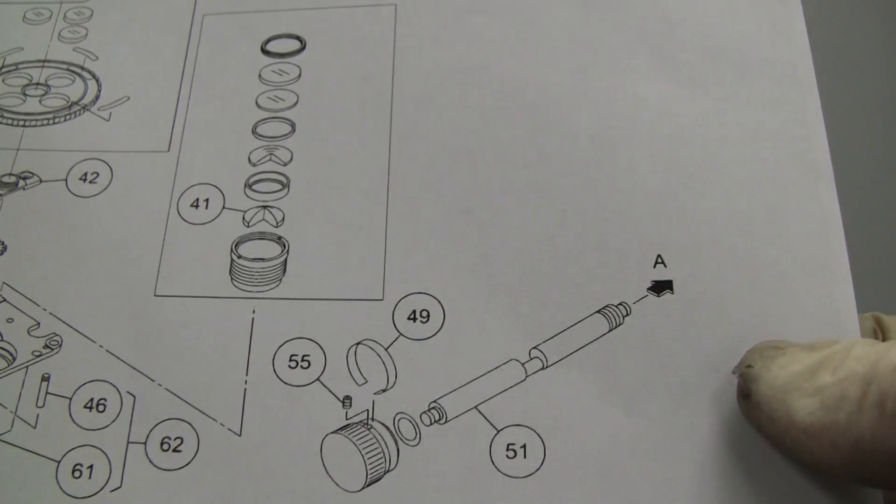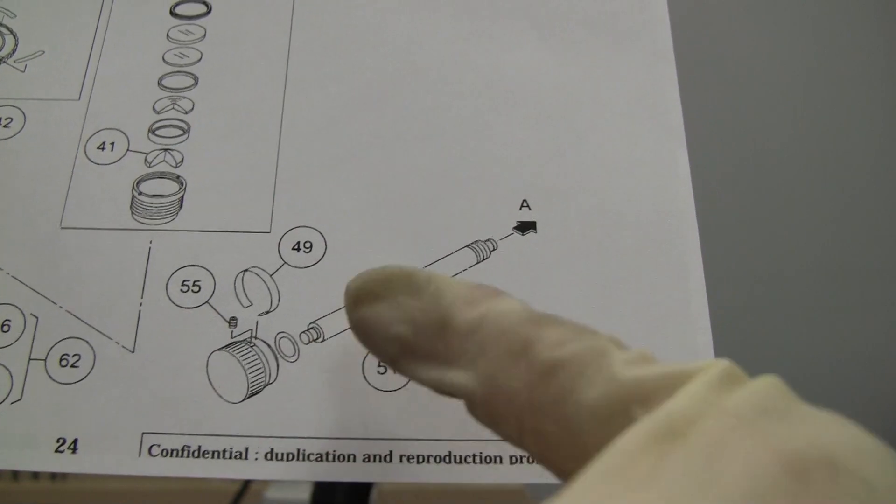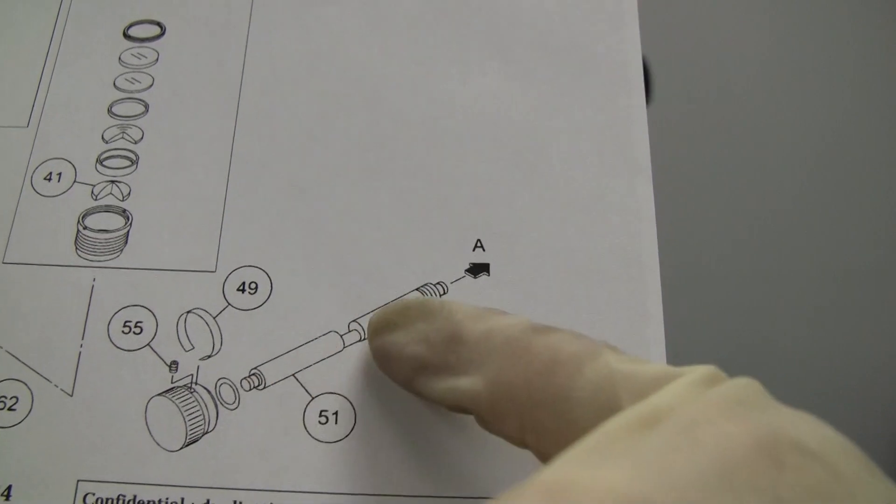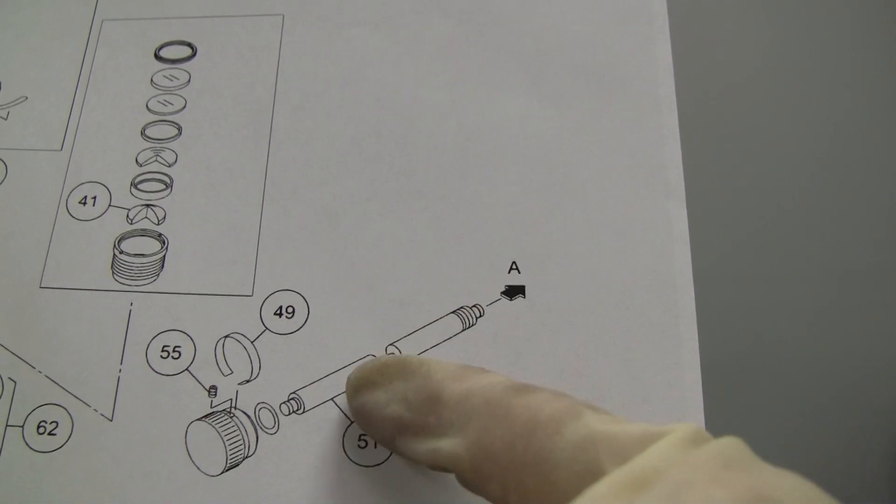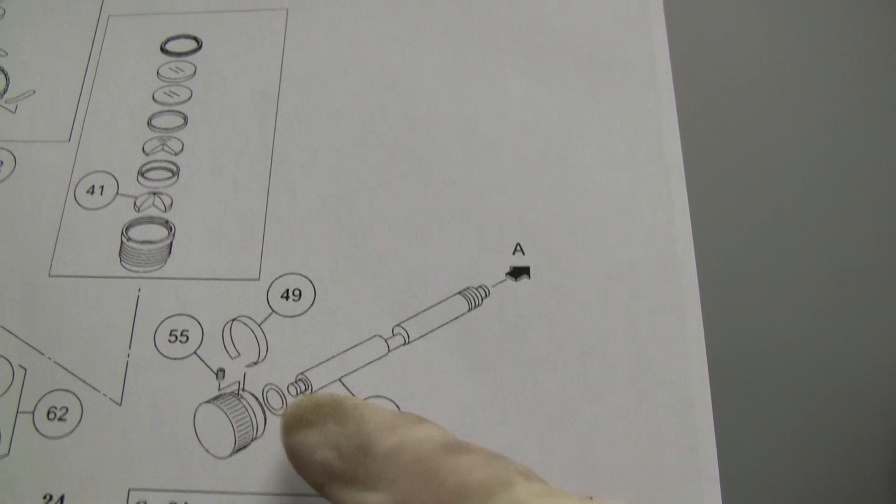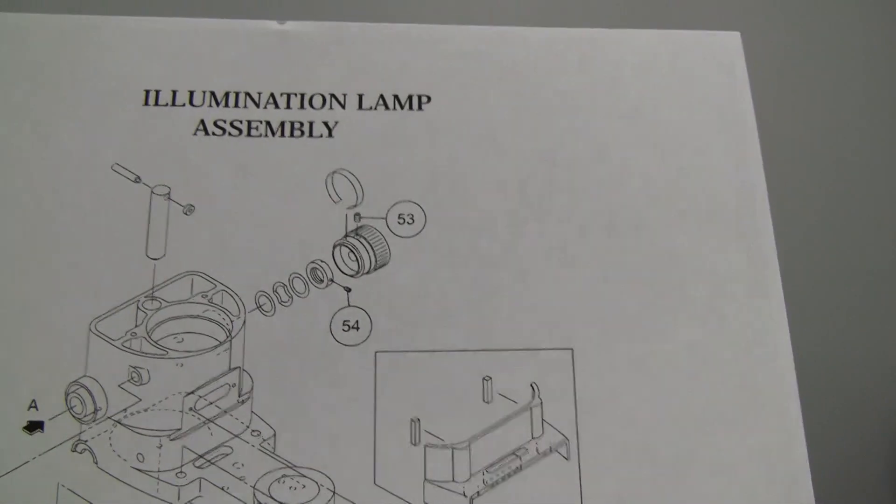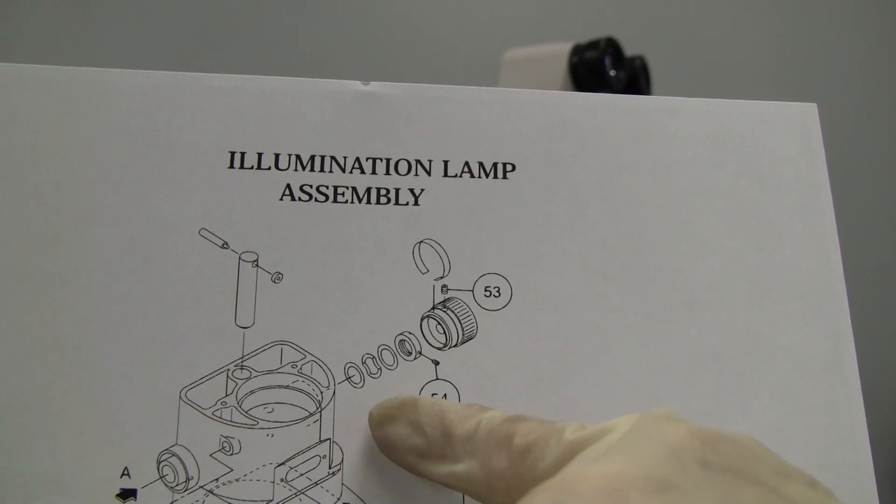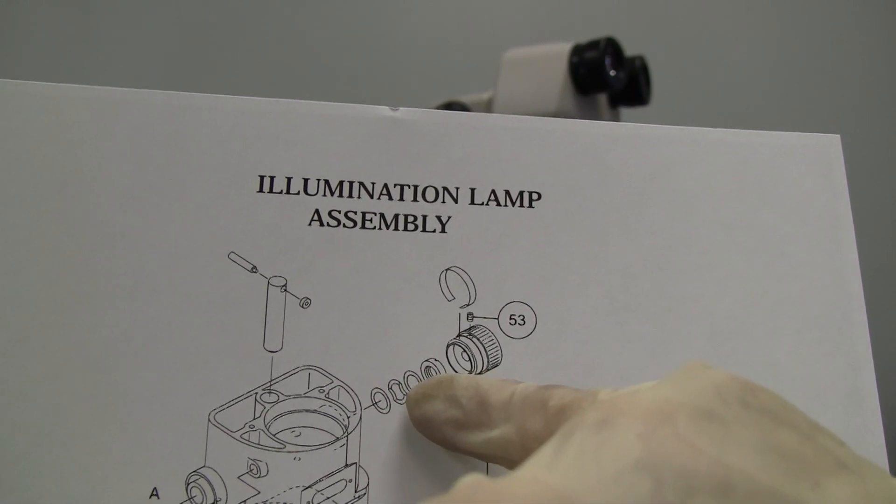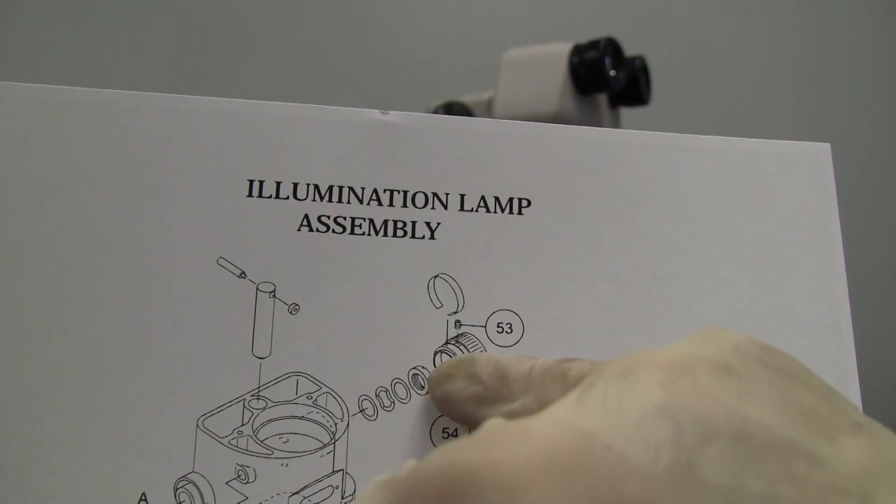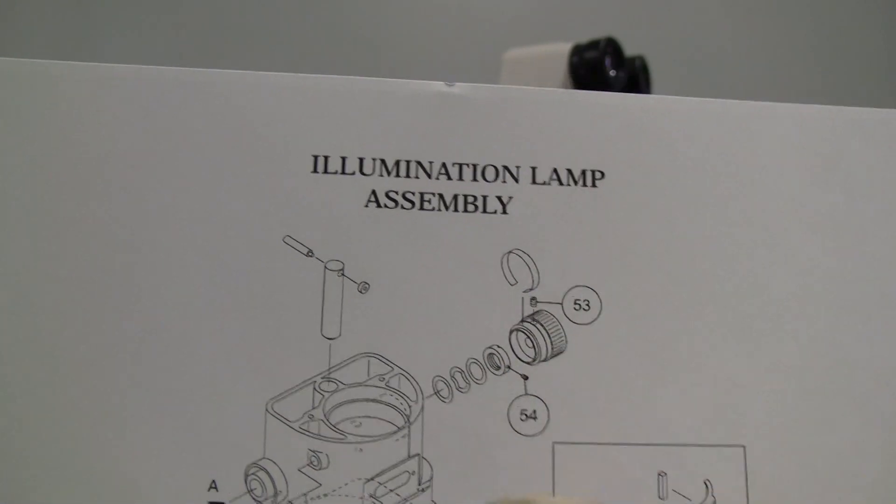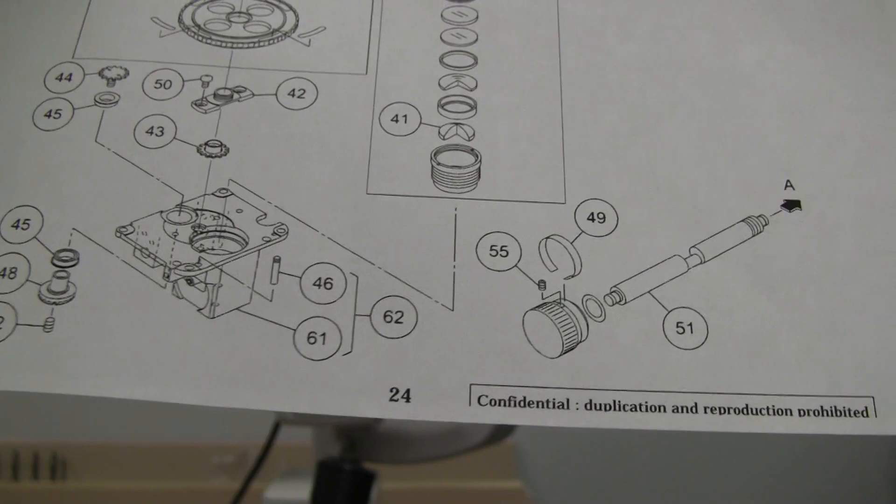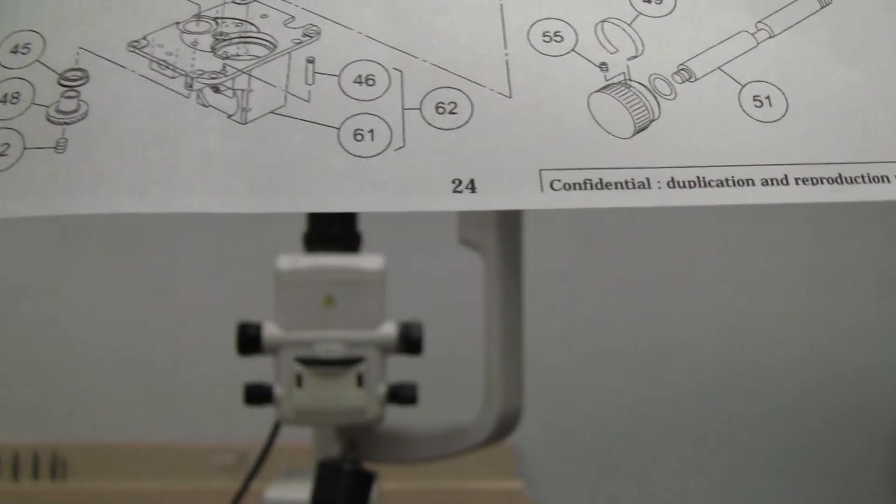If you wanted to see a diagram, there's our slit open close handle shaft or axle. It's a little washer. And here's the other side with its washer, wave washer, other washer, lock nut, handle, and the little piston. Thank you.